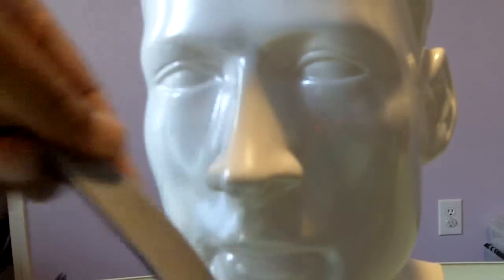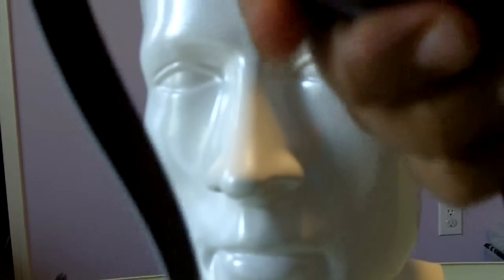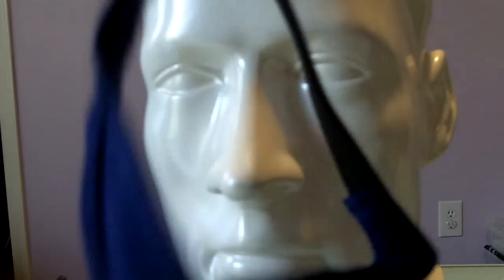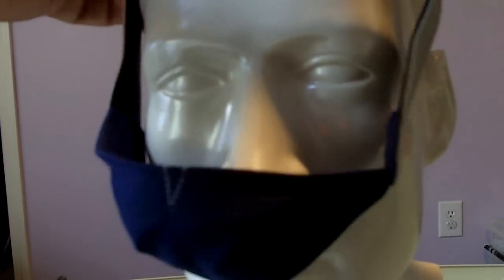This Velcro, depending on how tight you use it, as long as you don't go all the way tight all the time, this will last you. I know a lot of people have made this last close to a year before they replaced this CPAP chin strap.